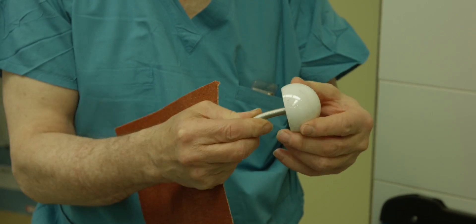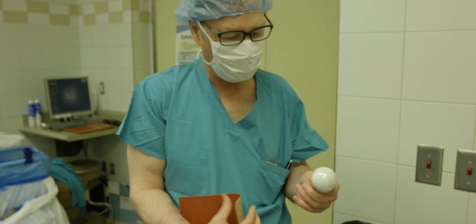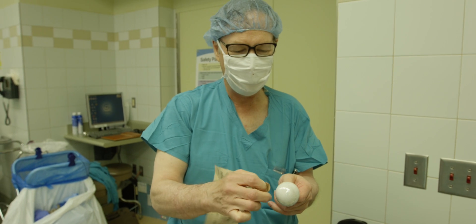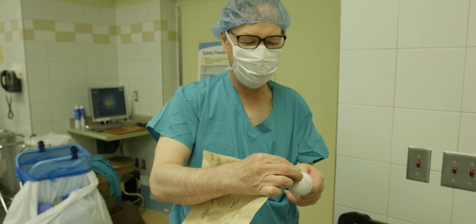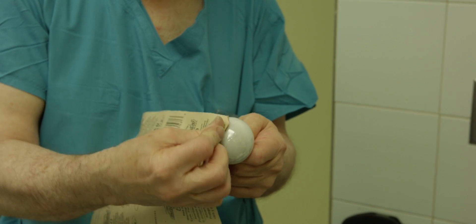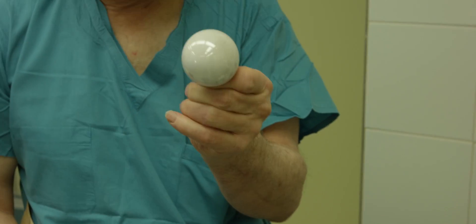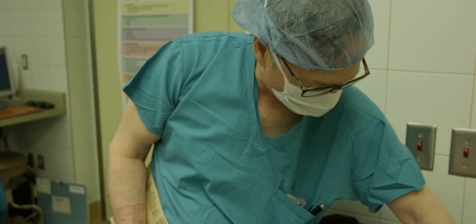Back to another resurfacing implant. This is a ceramic hip resurfacing with a detachable stem — right out of the wrapping, never been used before. Sandpaper on it. No mark.